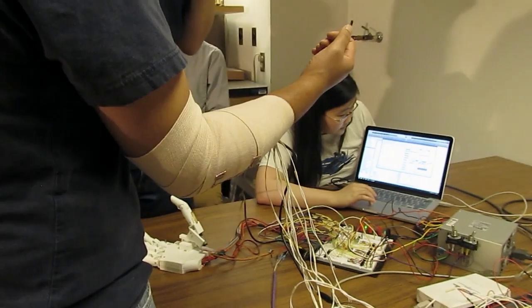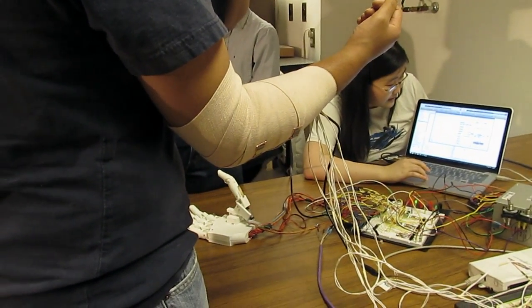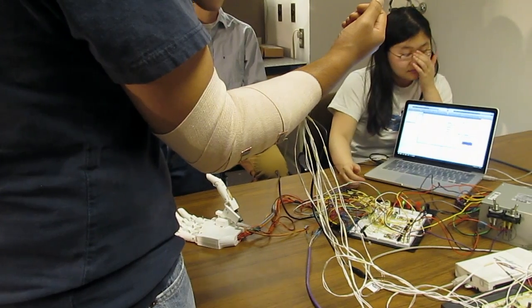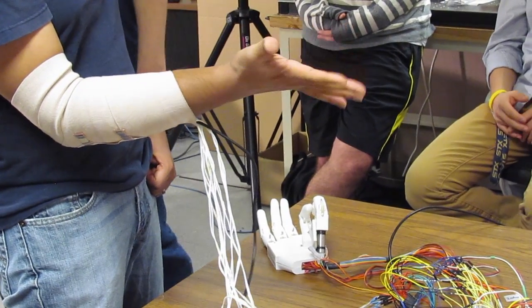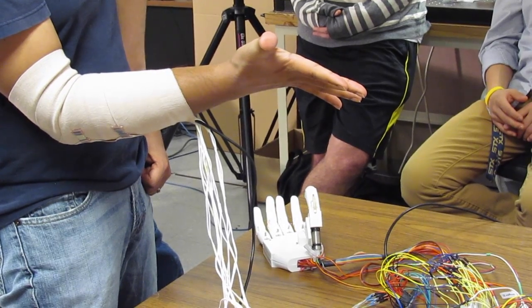What we really needed to do in this project was get the maximum performance from our motors and electronics while keeping the cost down. We're deploying this in developing countries, so we wanted to hit a price point where they would actually be able to afford these prosthetic devices.